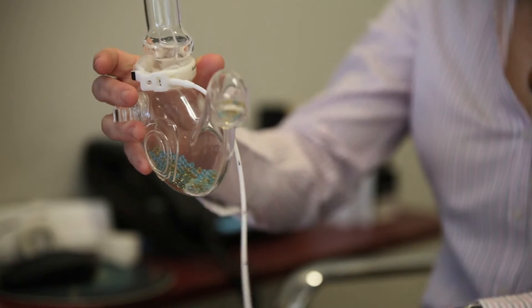The band is locked into place with instruments and the port is attached to the abdominal wall, sitting just on top of your muscle layer beneath some skin and subcutaneous tissue. You can feel the port through that tissue, and it can be accessed to fill the band with fluid to make it tighter or looser. The operation takes about half an hour, most patients go home the next day, and you'll be on a fluid-only diet for two weeks, then a pureed diet for another two weeks, before your first adjustment at the four-week mark.